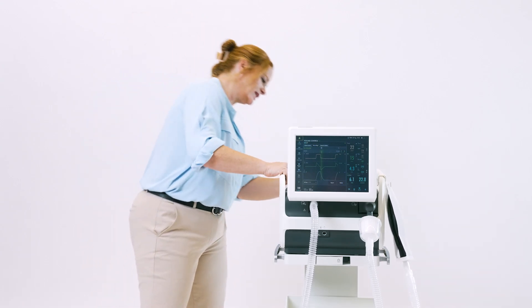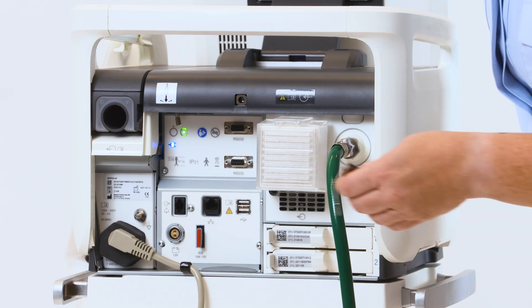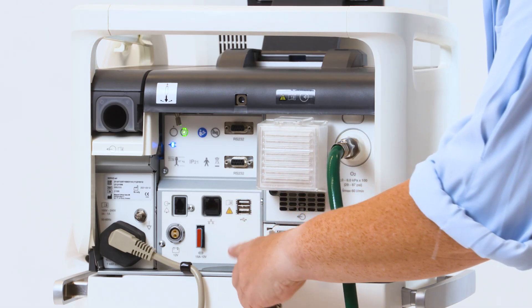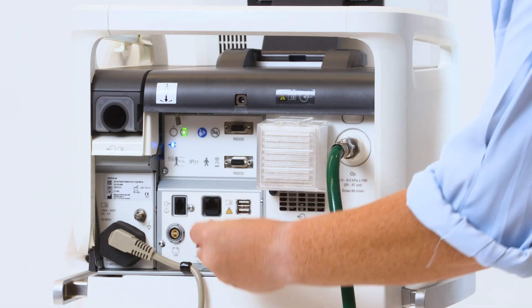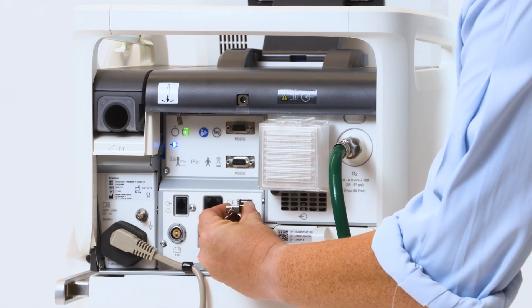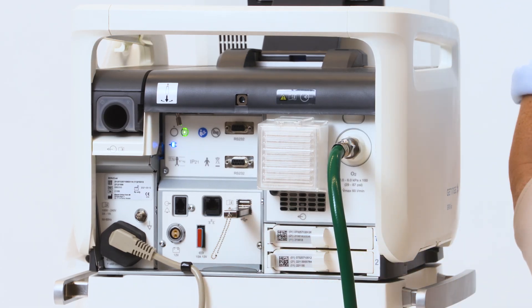Up to 40 of each can be saved. In order to remove those and put them on a USB, take a blank USB and plug it into the back. Two USB ports are located here. Either can be used. Plug your USB stick into them in order to save your shots.